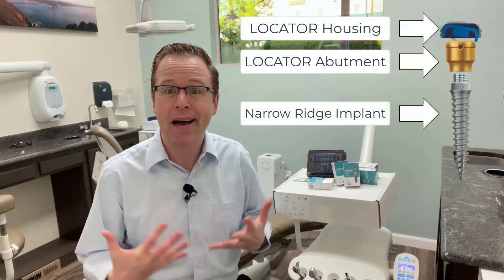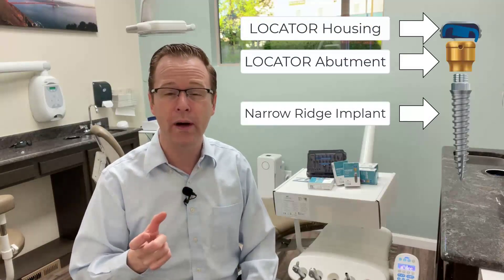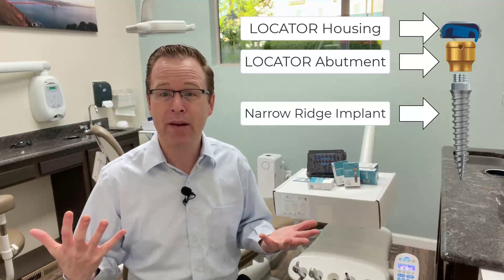What was exciting about the Lodi System was taking that conventional mini implant and putting a locator abutment on it, which is amazing. I was never really a huge fan of the O-ball or O-ring. I was always saying I would really love to have a locator on a narrow diameter implant. Lodi, when it first came out, hit that mark — having a 2.4 and 2.9 millimeter diameter in 10, 12, and 14 millimeter lengths was really outstanding as a clinical application.